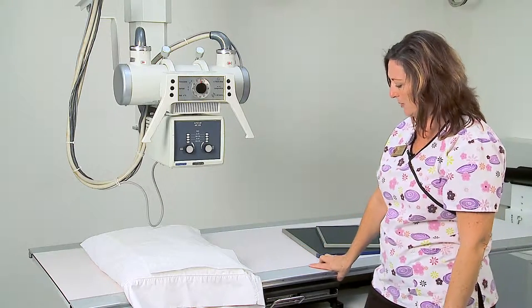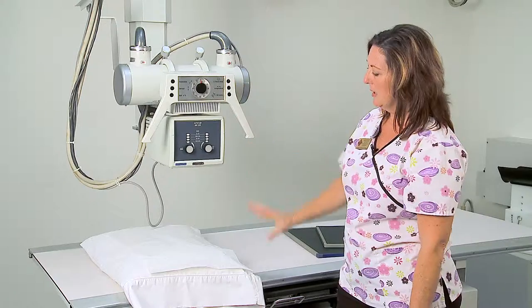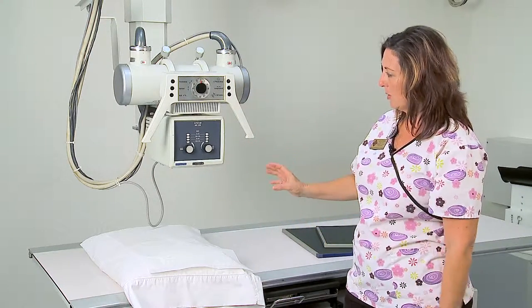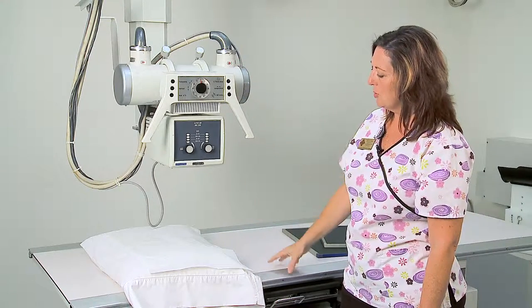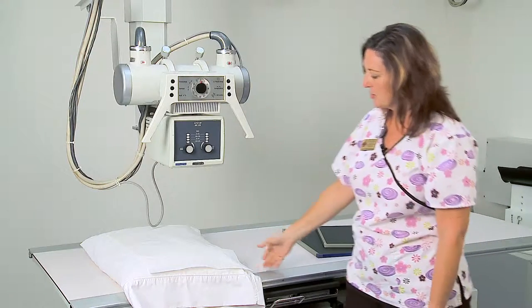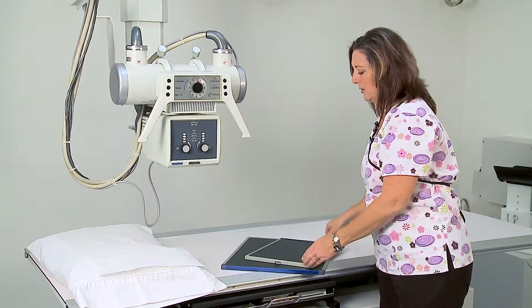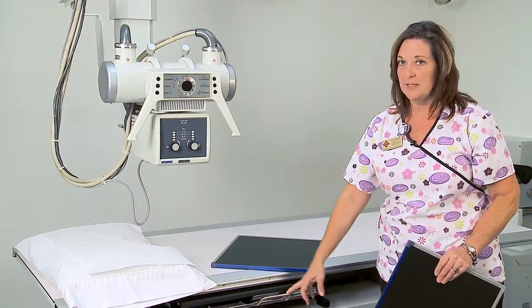This is very important so that when you're making exposures you are utilizing the appropriate size image receptor or cassette for your body part. Once you have detented the tube to the table, you are ready to insert a cassette. We have two different types and sizes of cassettes for what is called a bucky tray.